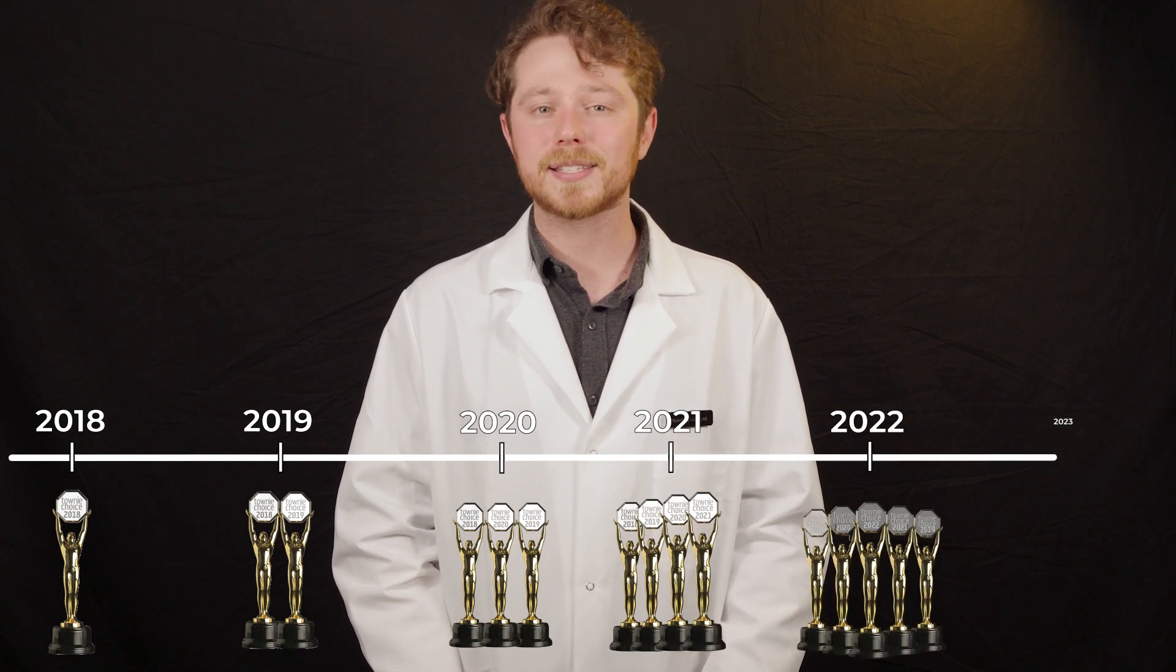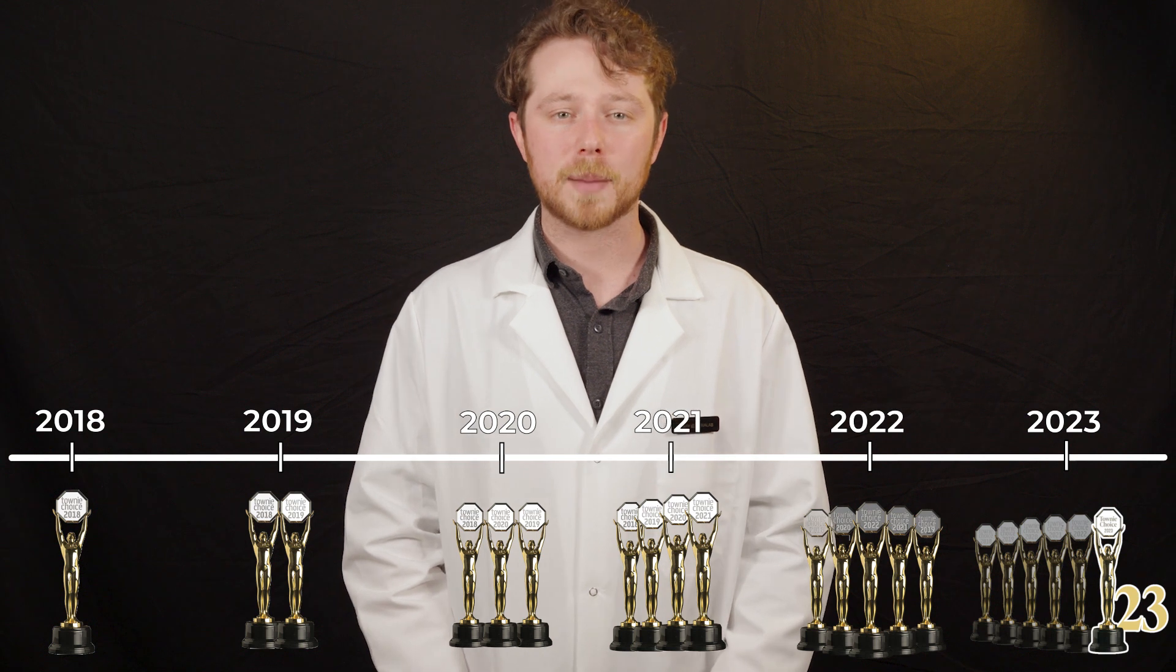Batteries and headlights were a claim to fame back in the 2010s, and although it's not our main focus anymore, we've never stopped improving the product. In fact, for six years running, we've won the Townie Choice Awards for the best dental headlight, and that's pretty impressive when you take into consideration everything else we've been up to.